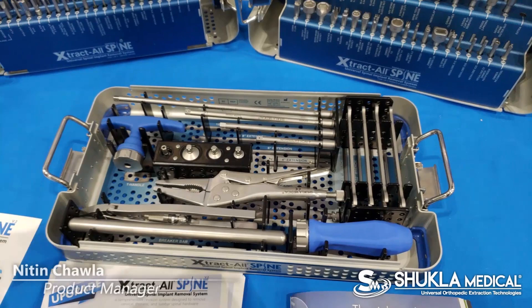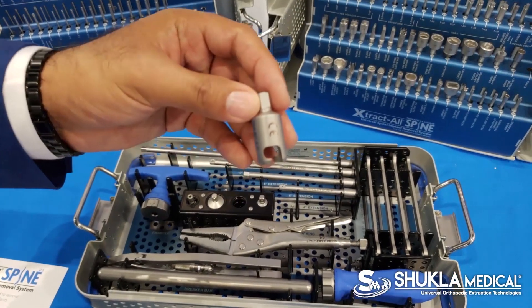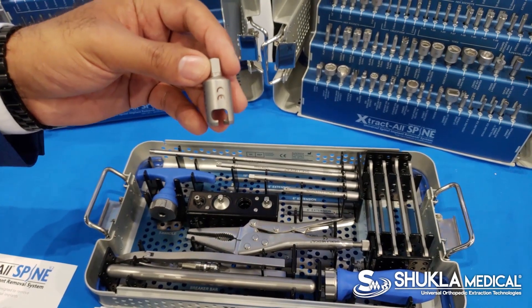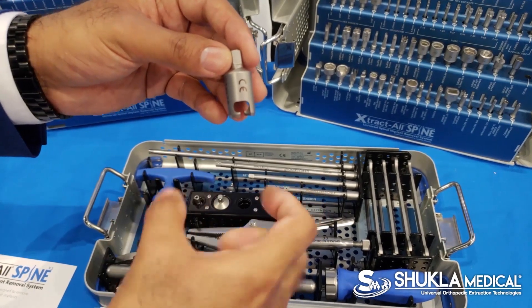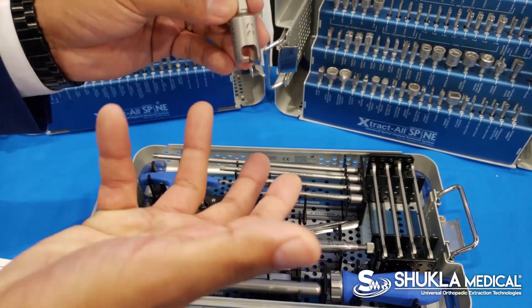Something very innovative that didn't exist before in the market, which is called a helicopter socket. Some of you may be familiar with this technique — when you have a construct that just won't come out, you can cut the rods on either end, put this over the pedicle screw, and literally spin the whole construct right out.